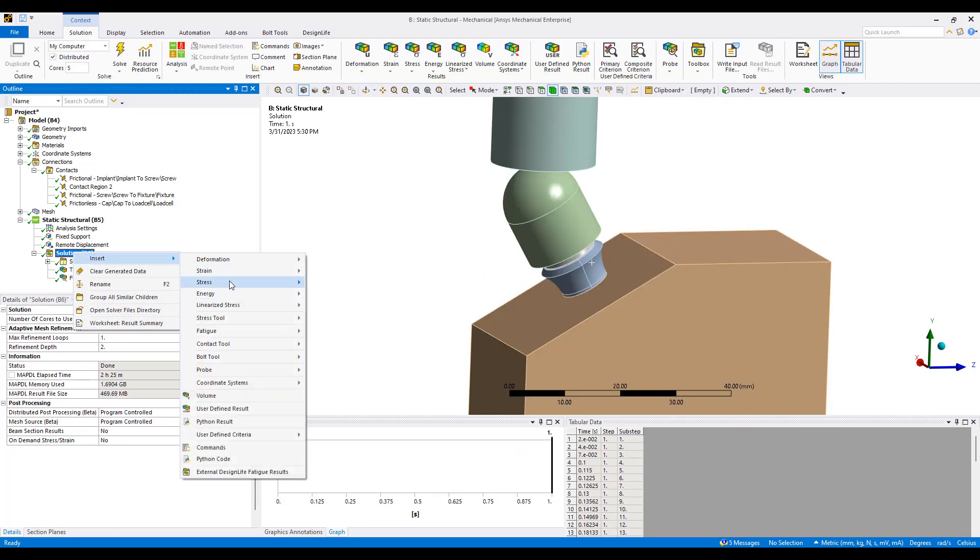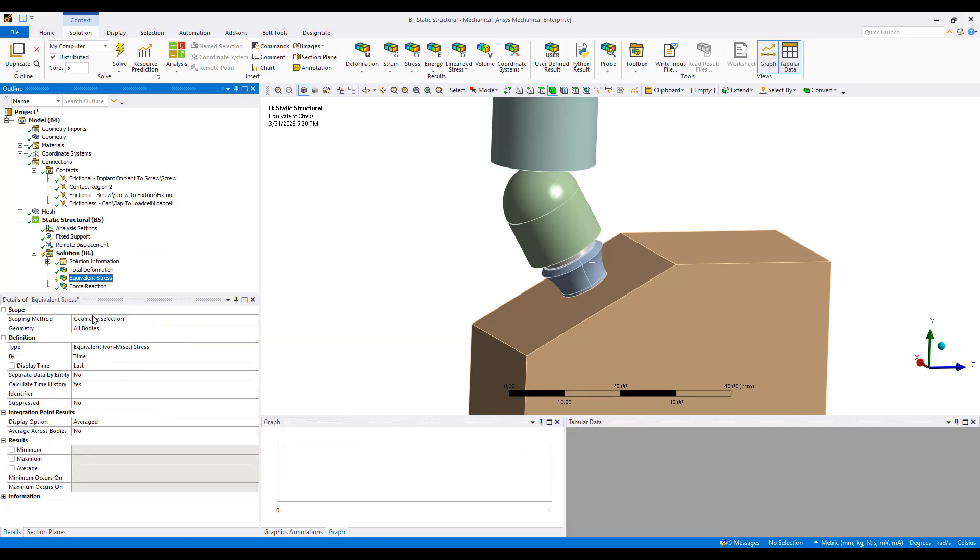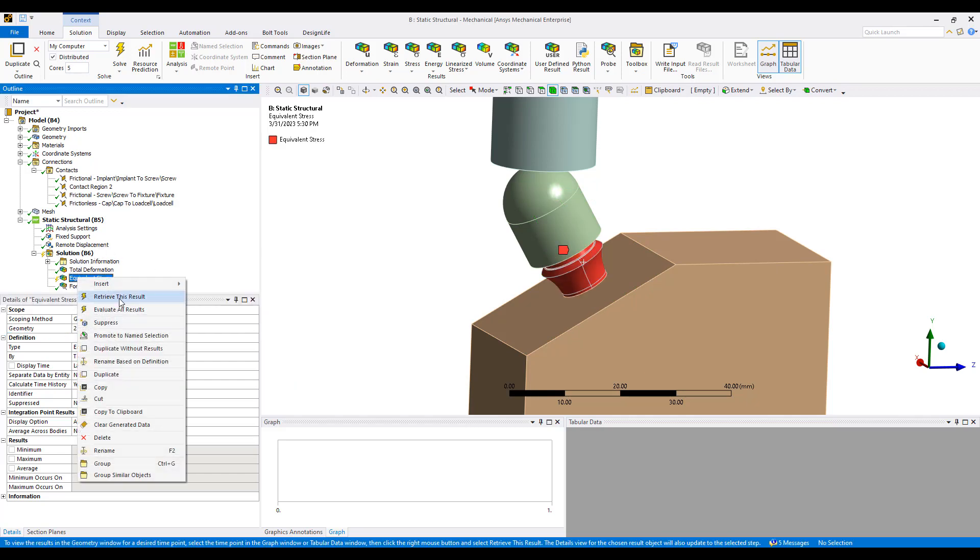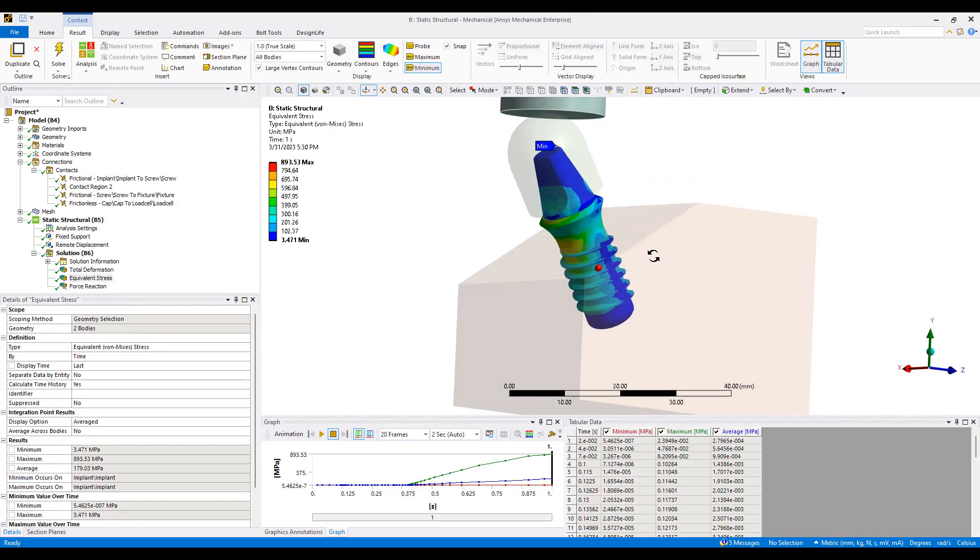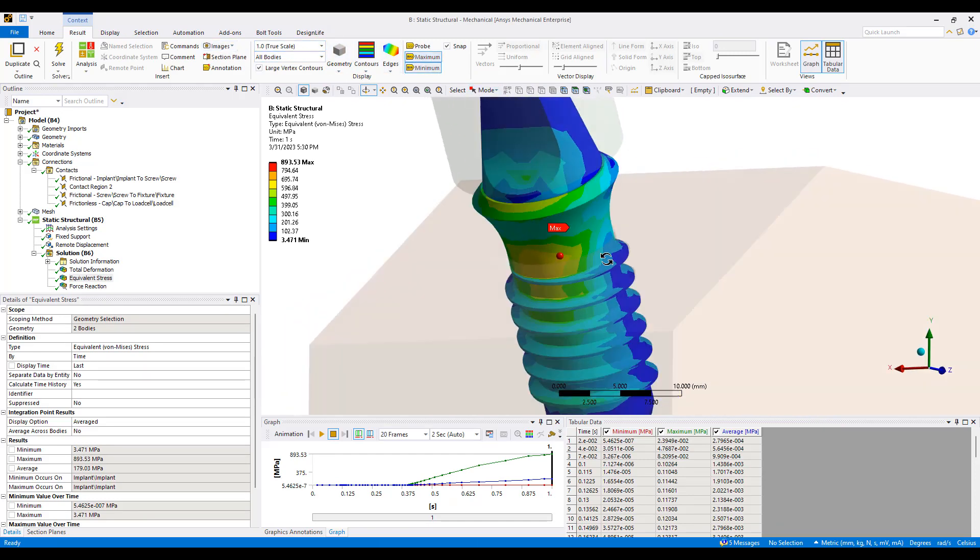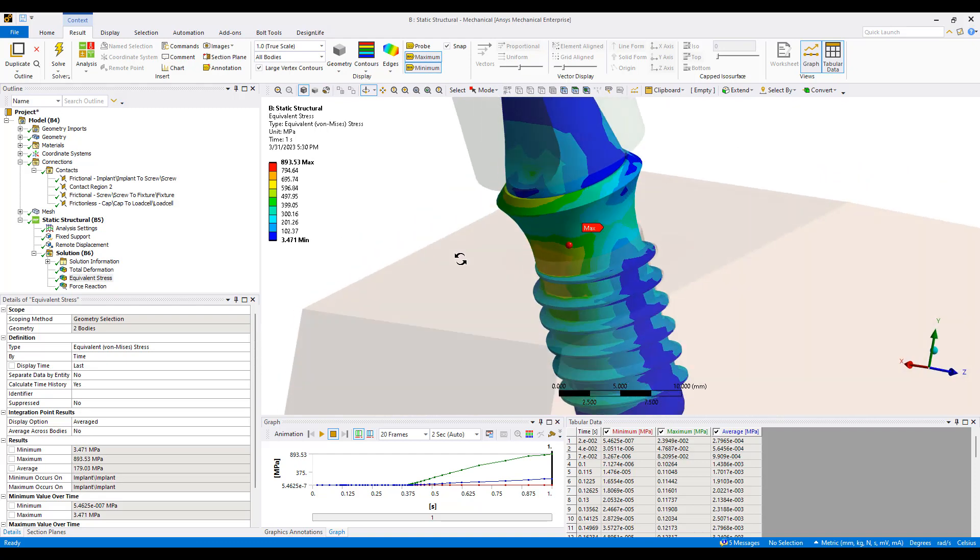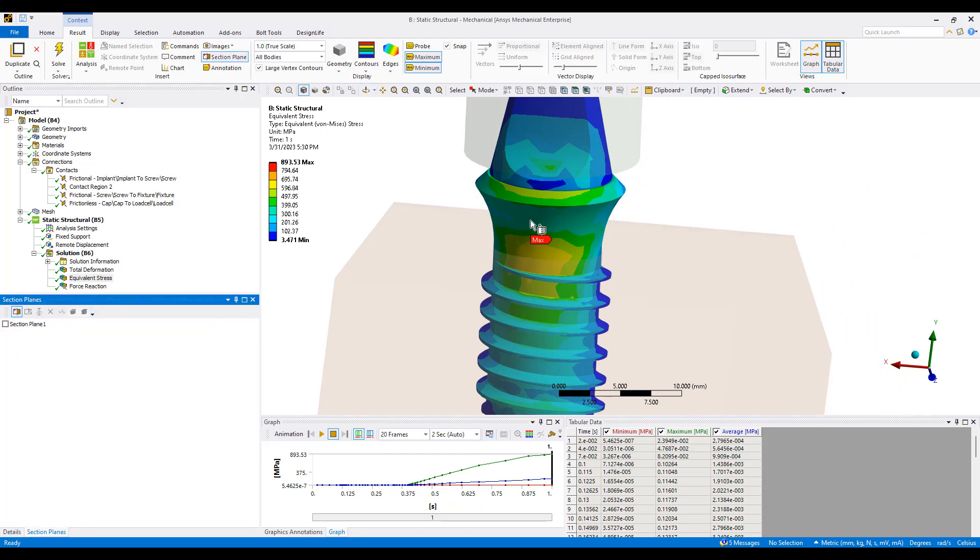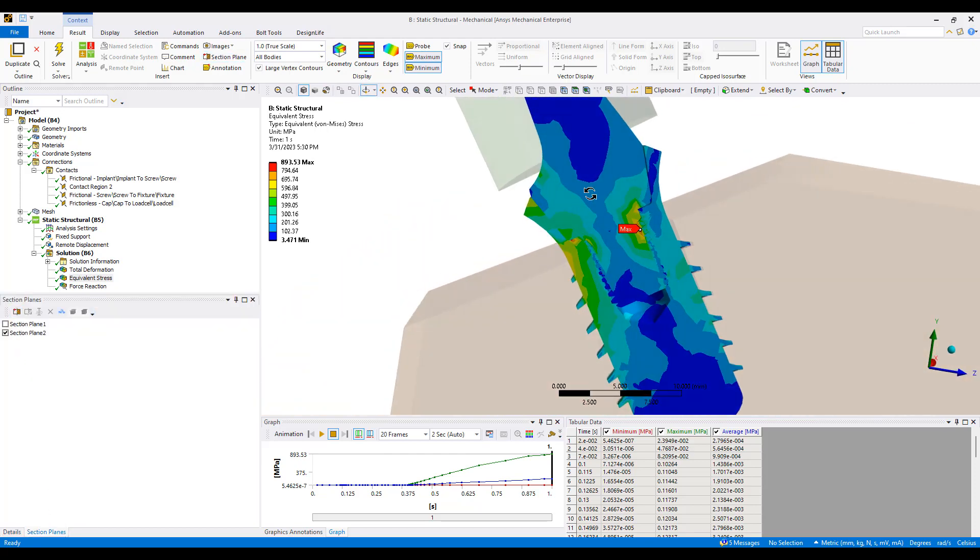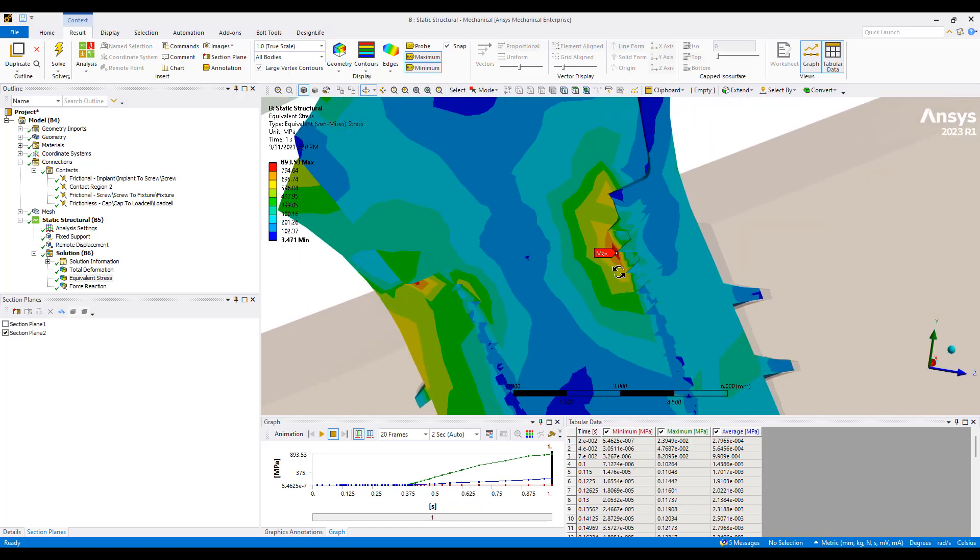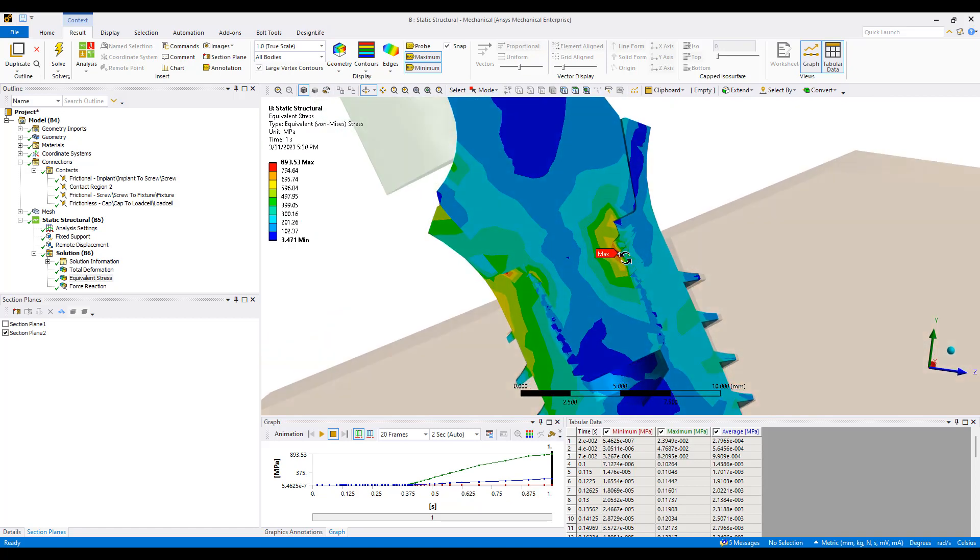We can also look at the stress. Maybe we're not interested in all the stress but just the stress in the implant and the screw itself. We can look for a maximum stress location which is on the inside. There's a high stress area here due to the contact location. If I was to draw a line and segment the model I can look inside to see that at this teeth point is where I have a lot of stress. That's the stress on the implant that builds up. If anything's going to fail that's likely an area of failure.